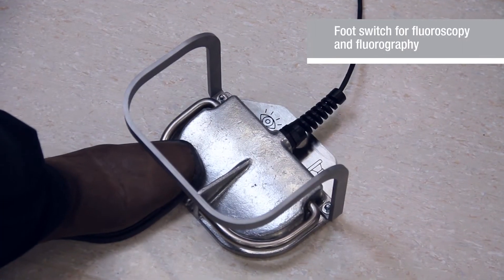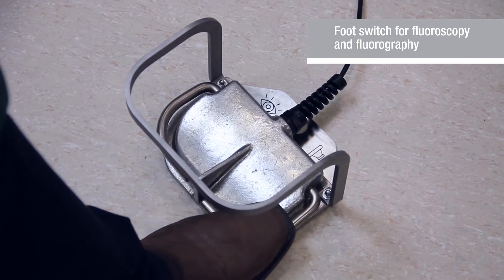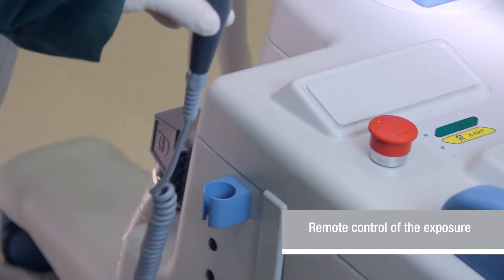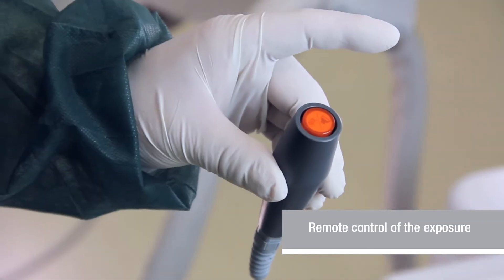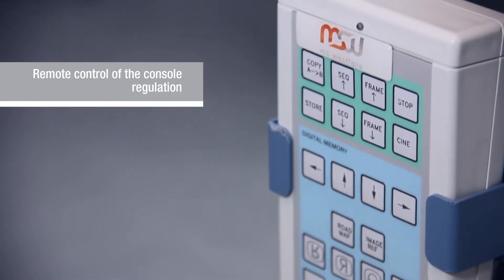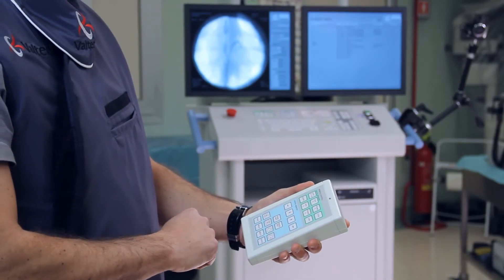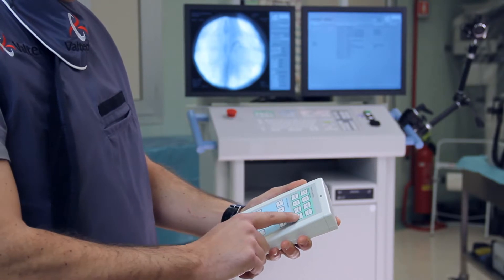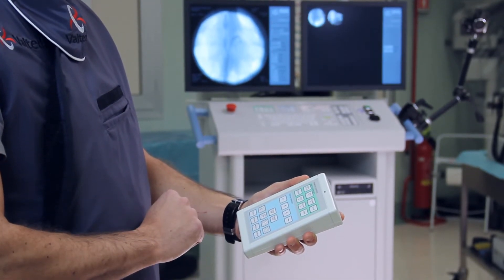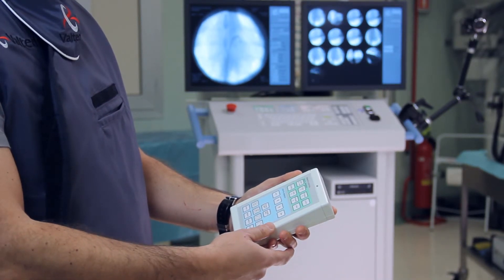The surgeon may use a pedal for switching between modes during an operation. In addition to the pedal, there is a button that allows quick switching to the radiography mode. All the main functions of the digital video system may be controlled remotely with the help of an infrared remote control panel.